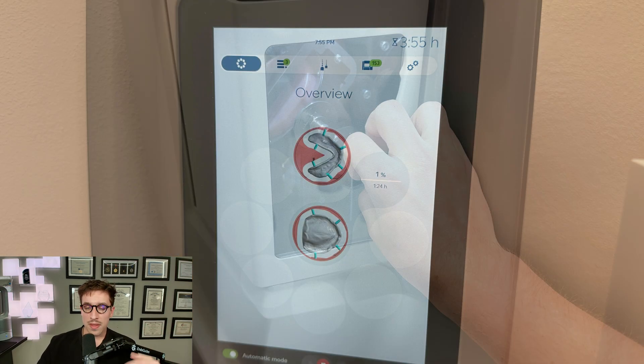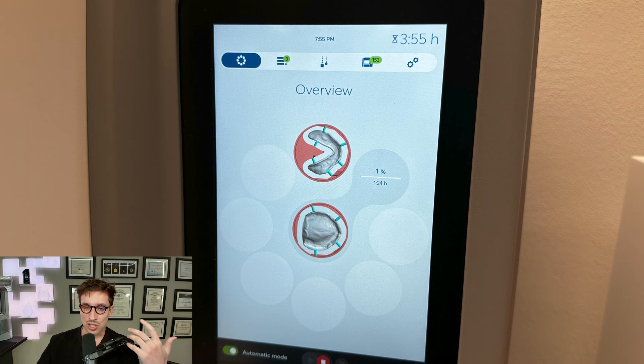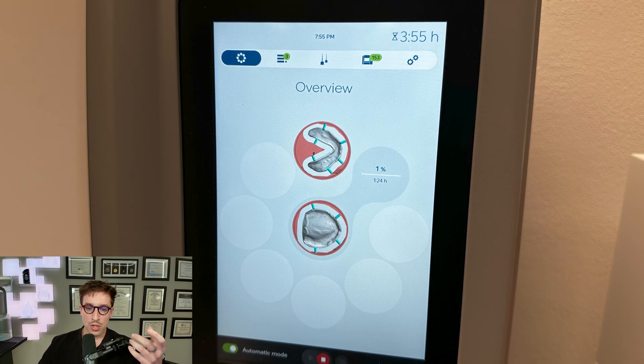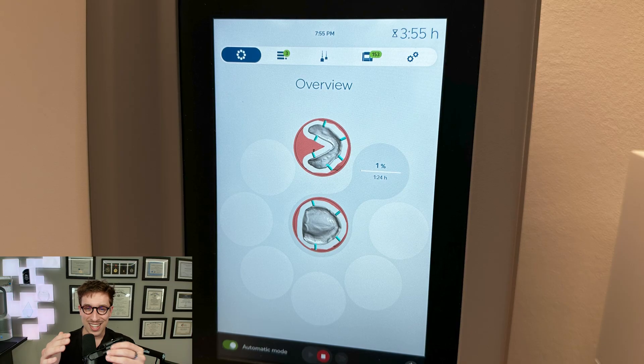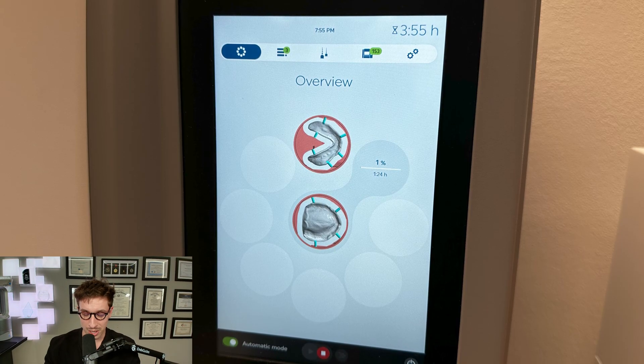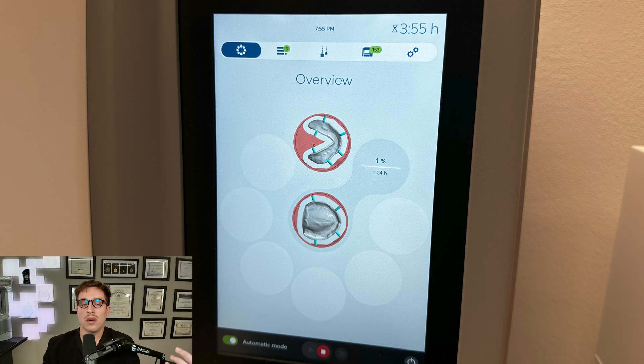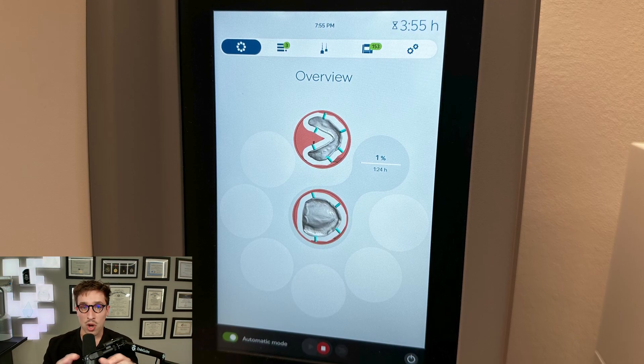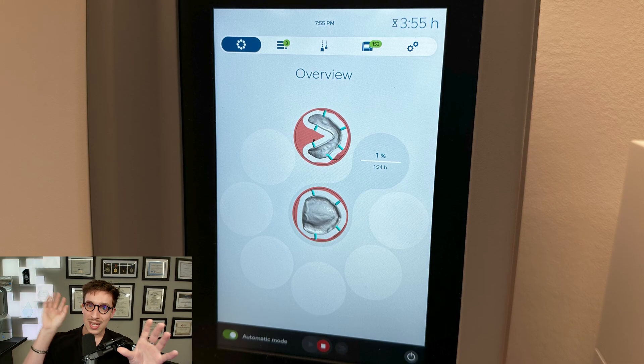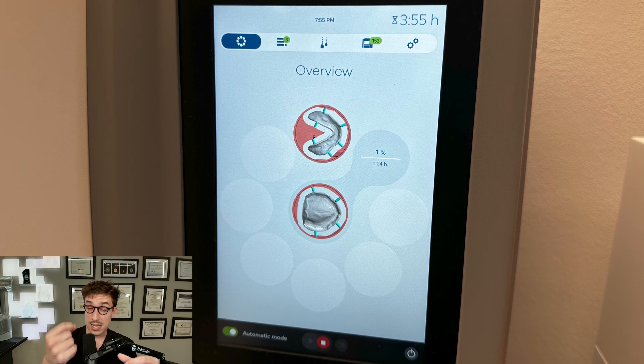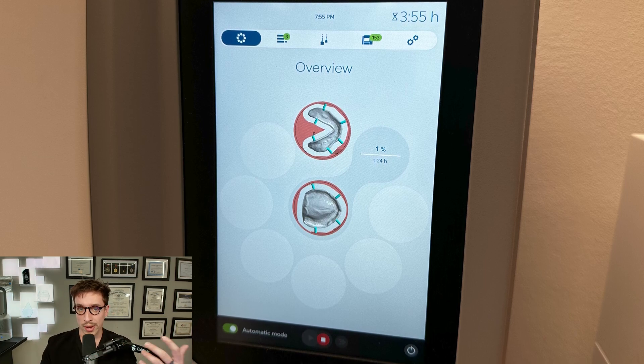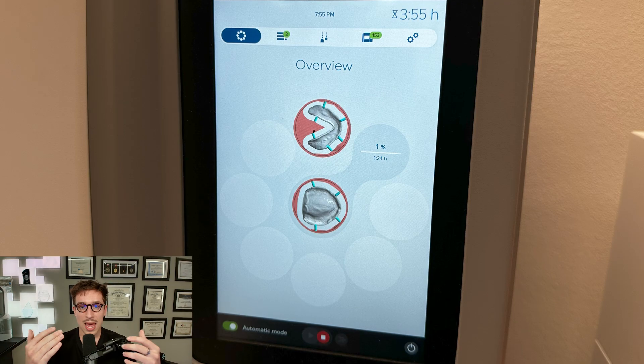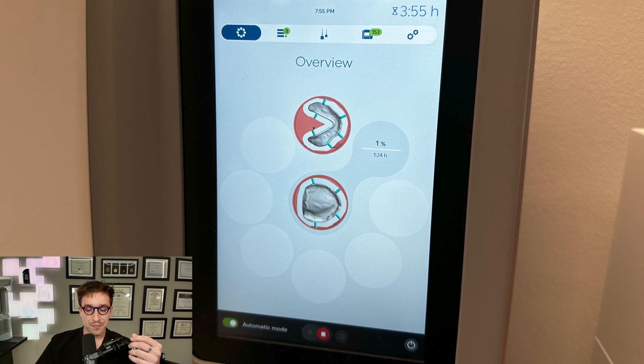Now we're going to be good to go ahead and put this into our milling unit. I always like to have it in automatic mode and you can see that it's been linked to your job that we've sent over. If you're not seeing this screen where you can see the jobs that are nested in the dentures you're going to be milling, then something's gone wrong along the way. You haven't properly linked it to that RFID tag most likely, because the file gets sent to the milling unit and that RFID tag of either that container or the actual sticker that was originally on it, that's going to be what tells your PM7, hey, this is the job that I'm actually going to be milling right now.